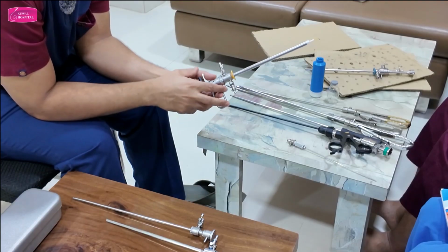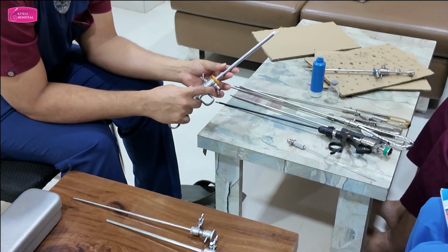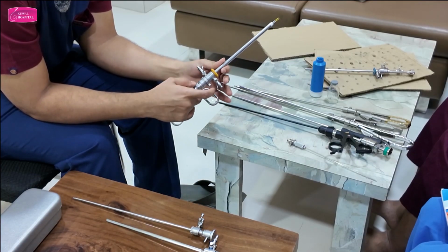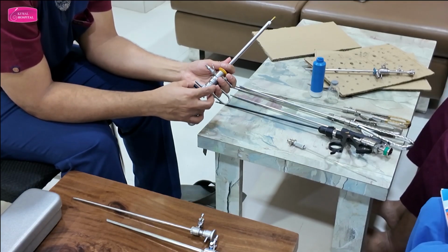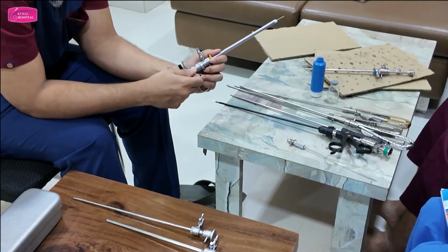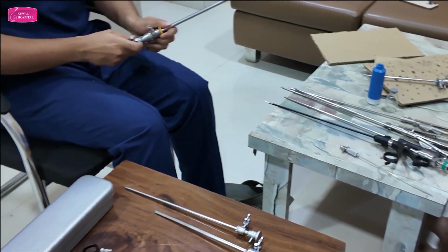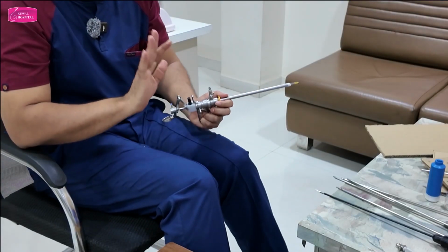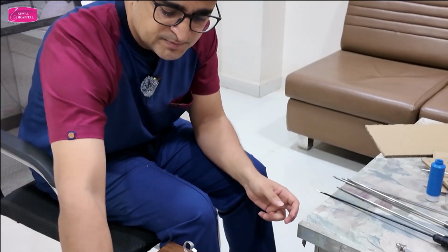Sometimes there are buttons. So now here there are two different locking mechanisms. The outer sheath locks to the inner sheath by a button. See? Yes. But the inner sheath locks with the operative instrument with this rotating channel. So that is why I told you that you have to understand. Now about this.